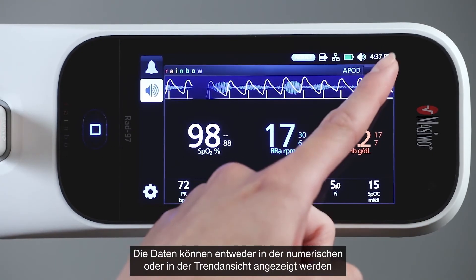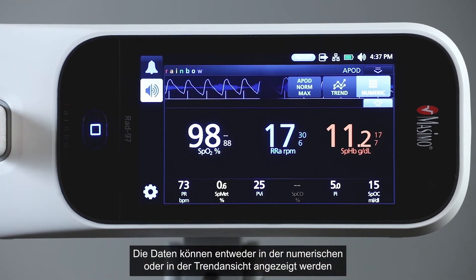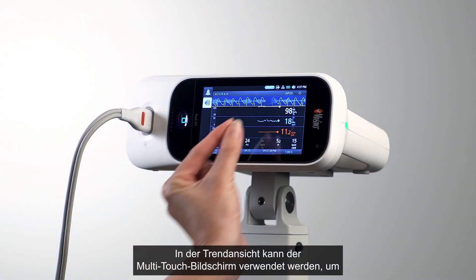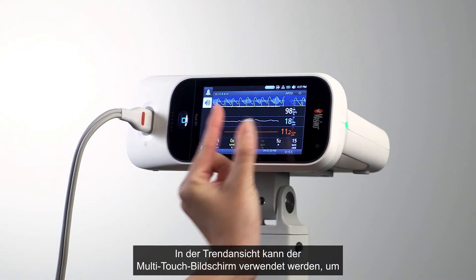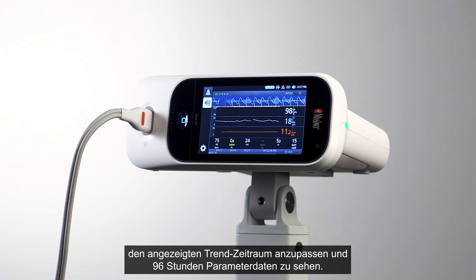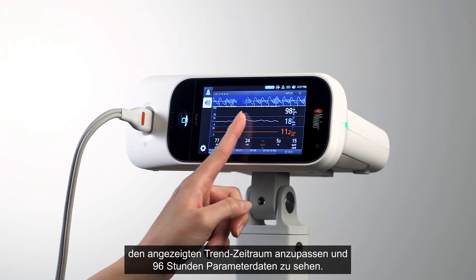Data can be displayed in either numeric view or trend view. In trend view, clinicians can use the multi-touch screen to adjust the range of trend time displayed and scroll through up to 96 hours of parametric data.